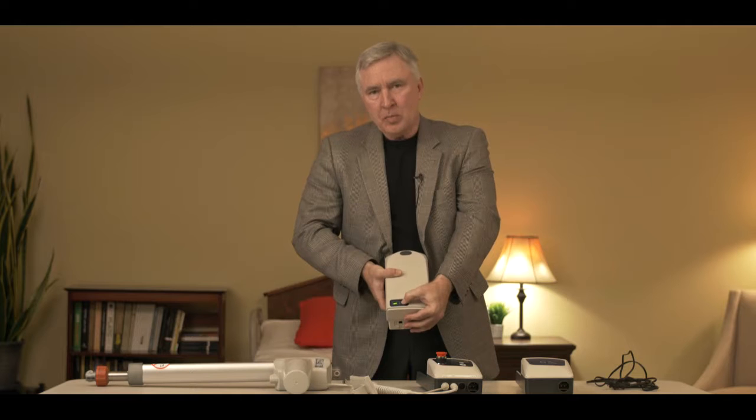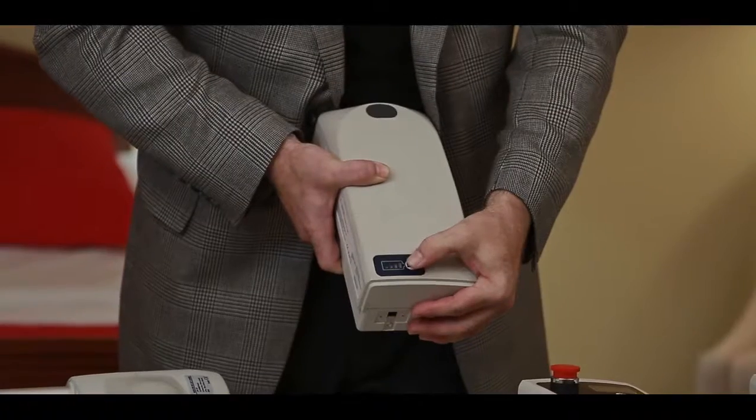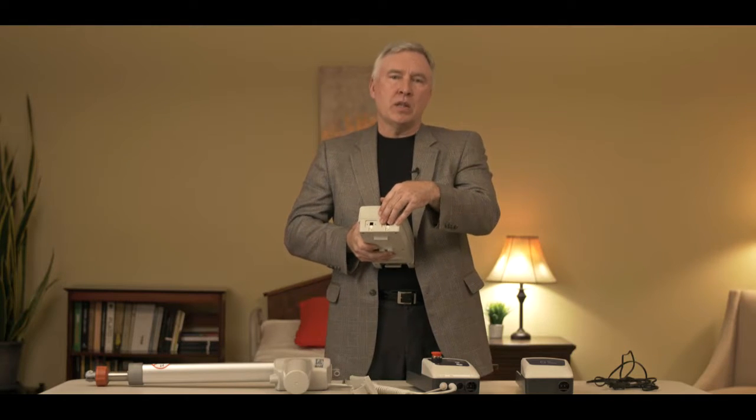What if the battery isn't working? When you push the gauge button and get a reading, that doesn't necessarily mean the battery has the power to run the lift. The only way you can truly test the battery is by putting it under a load and seeing if it maintains 24 volts when running under load. If you put the system together, try to run it, and the lift makes some beeping noises but still doesn't go up and down, take the battery to a qualified technician who can put it under load and test it. Batteries are probably the number one reason the lift stops working.